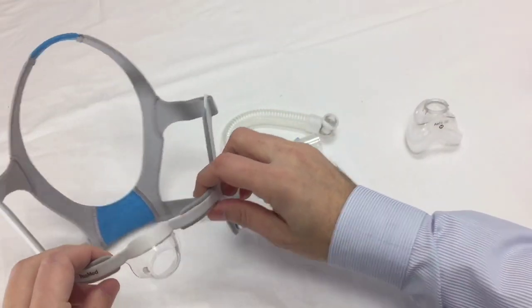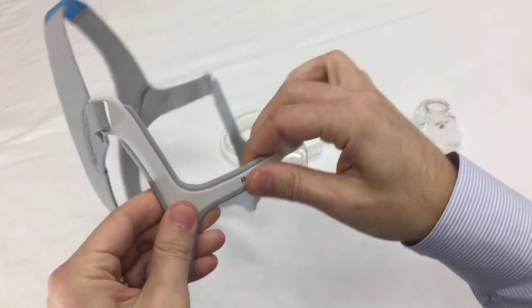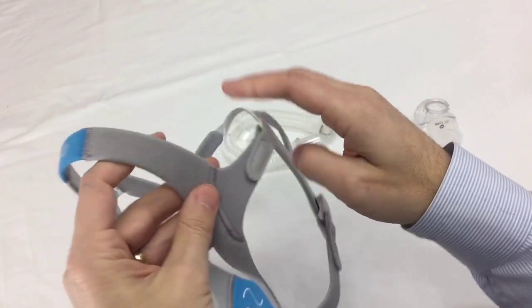Pops right into the frame too, nice and easy. And that frame, you can see how flexible it is. Has a real soft padding to it. It feels great on your face, won't leave any sort of marks.